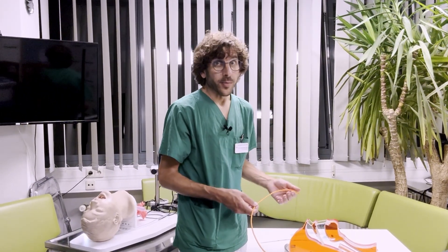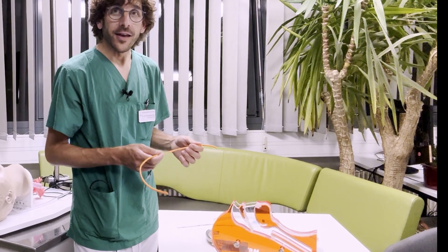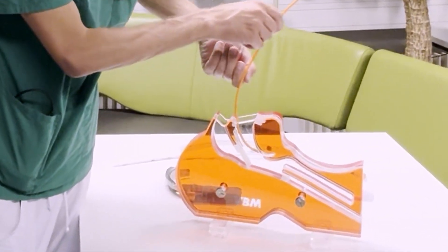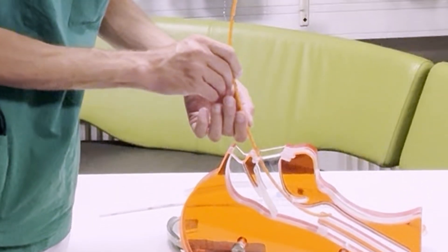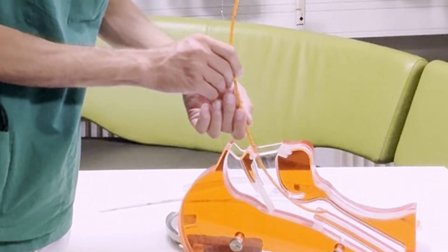There are many possible techniques that we can use to navigate the second curve, which I will show in different videos. One very convenient technique is to twist the device 180 degrees once we've navigated the first curve.